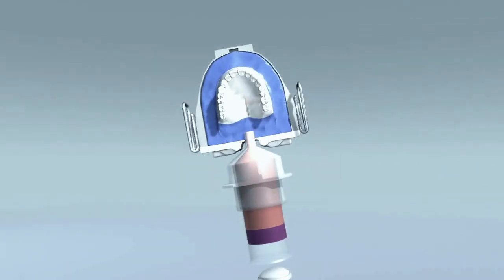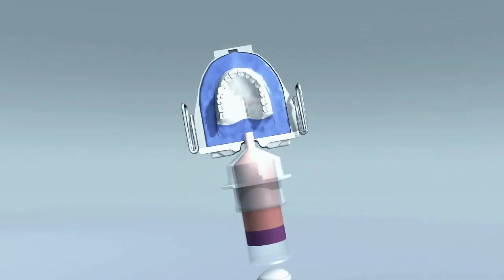With IvoBase, the air in the anterior region automatically and completely escapes through the aeration filter until the flow of the resin seals the aeration filter and sets.